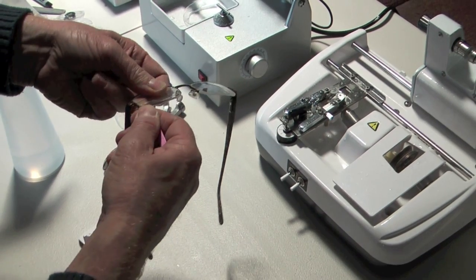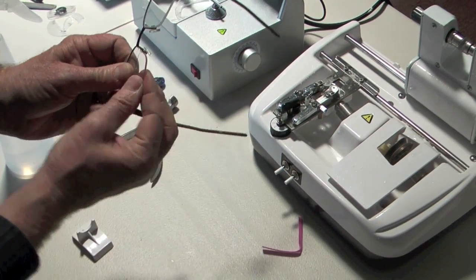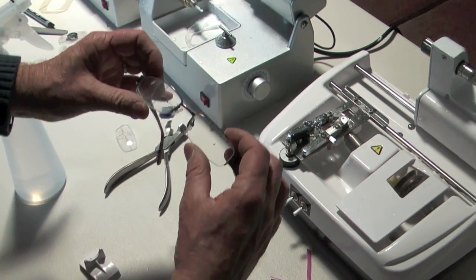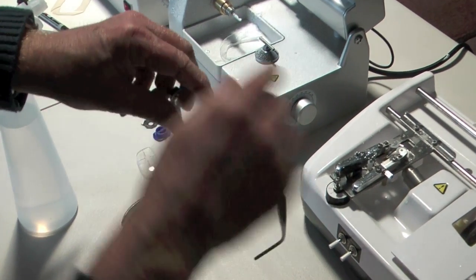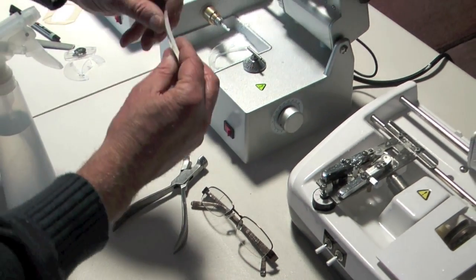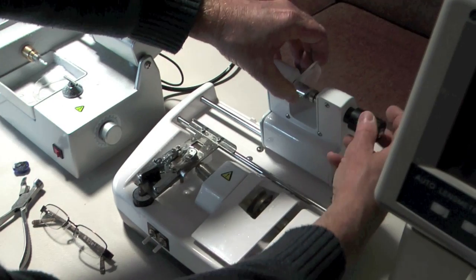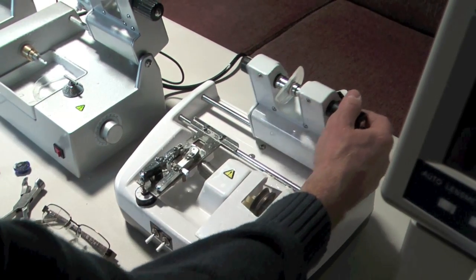And hopefully it will fit. Like that. Okay. So that's a reasonable fit. And we're going to do the other lens now. So we've got that lens in there. So this is the left lens that we're going to do. So we do the same again. We put the lens into the clamp. Bring it over.